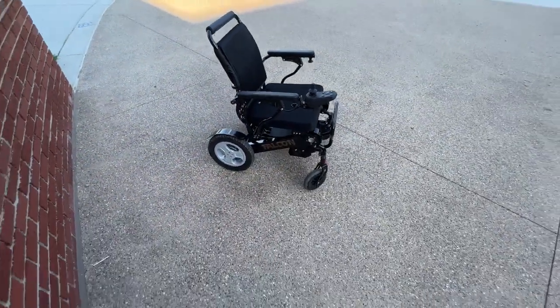Right here I am looking at a Falcon Power Folding Wheelchair. The Falcon Power Folding Wheelchair comes in multiple different colors - it's an HD variation and a couple of the basics. It holds up to 400 pounds, is 24 inches wide, and has two 250-watt brushless electromagnetic motors. I will discuss the validity of brushless electromagnetic motors in just a second.